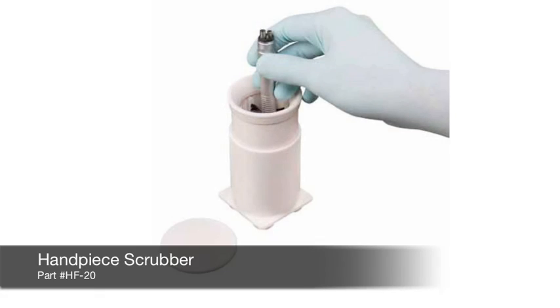We also offer a handpiece scrubber to aid in pre-cleaning handpieces and instruments. Brushes inside the unit scrub off debris and the suction cup base holds the scrubber in place.